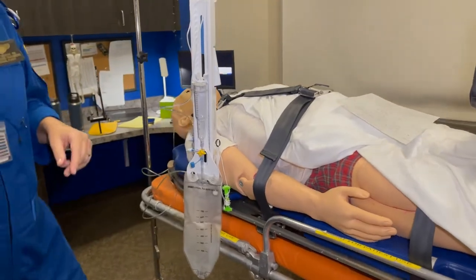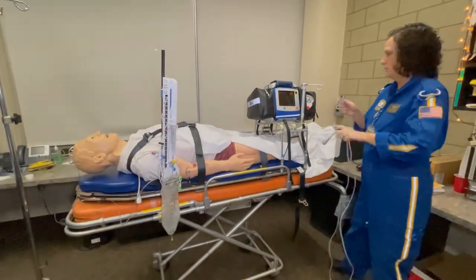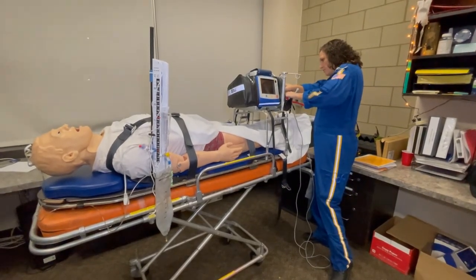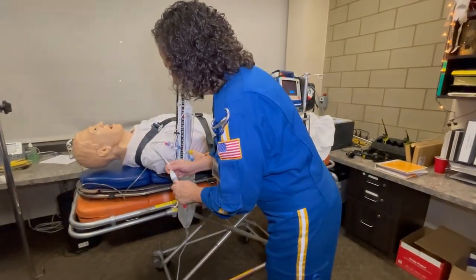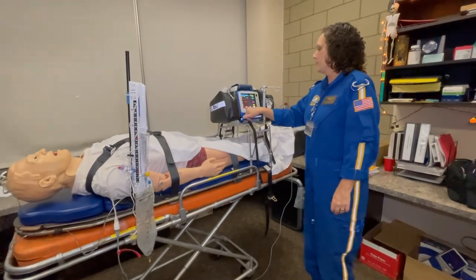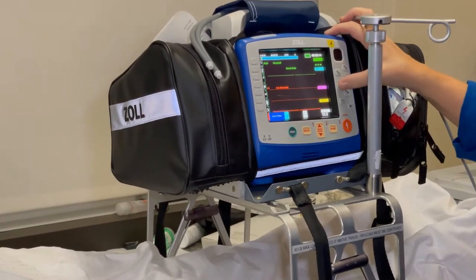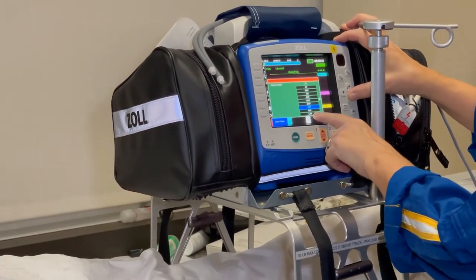Next, attach the system to your monitor. We have regular pressure cables — grab a couple of extras before you go so you can also measure arterial pressure. We only carry one of each, but extras allow you to monitor both arterial pressure and ICP. Setting this up is just like setting up an art line. When it comes on, it's the regular arterial line setup, but we want to label this ICP. Scroll down to zero probe, select, go to source label — which is second from the bottom — then scroll down to ICP, which is also second from the bottom.